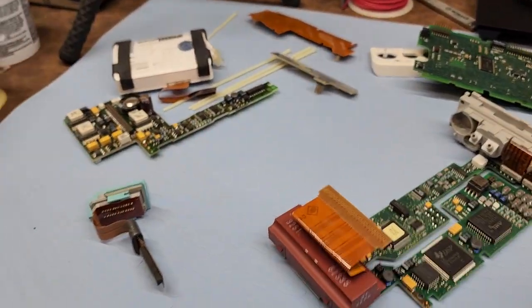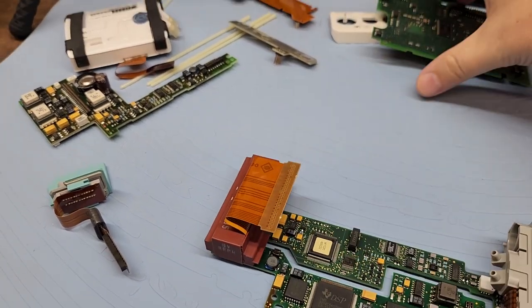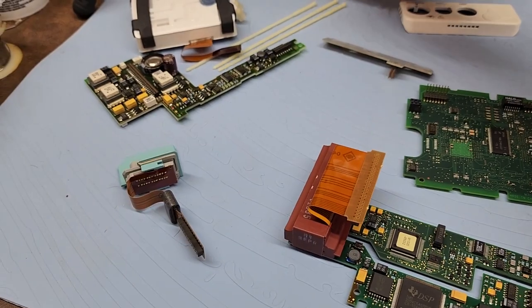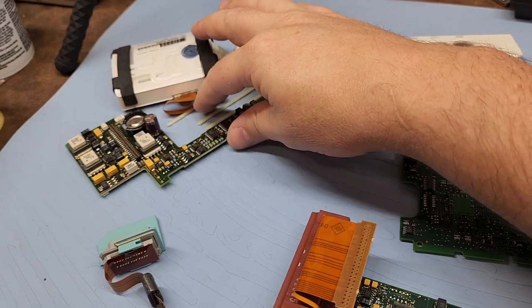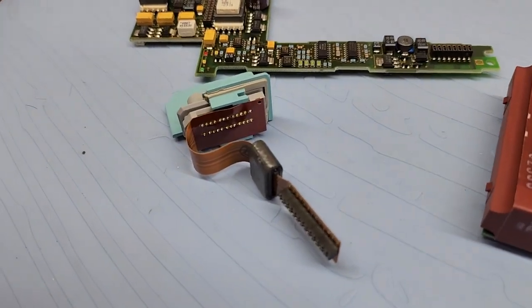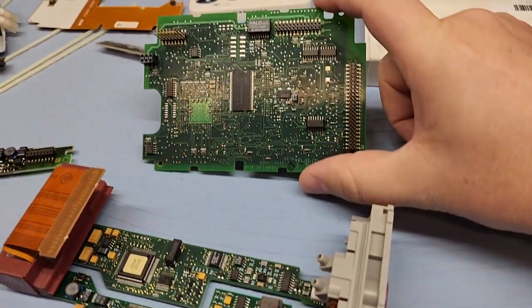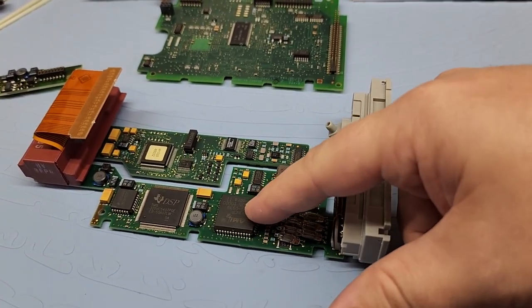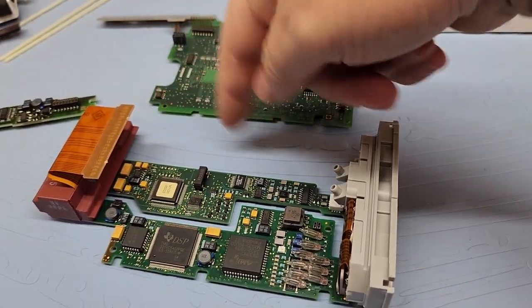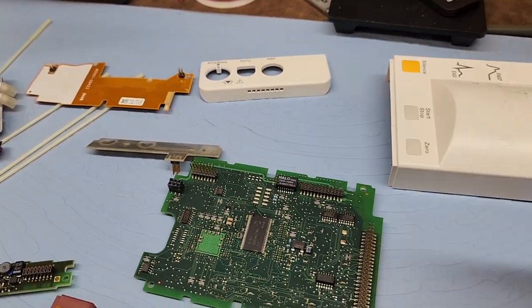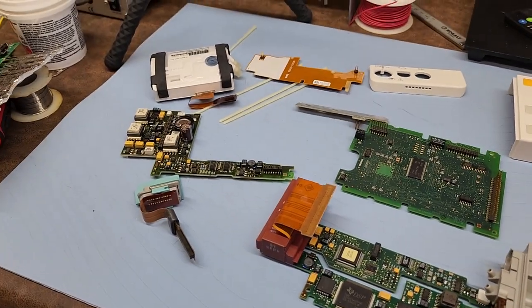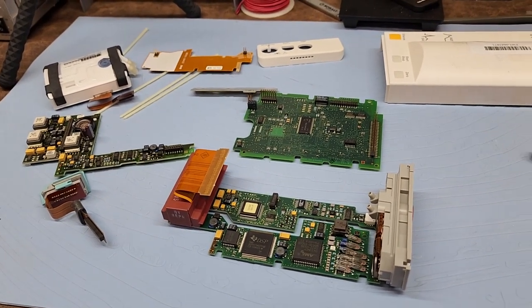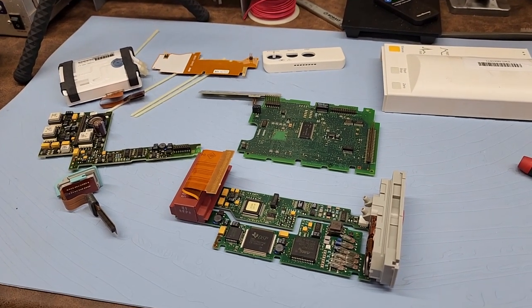So anyway guys, I know that was kind of a crude teardown and maybe crude explanation of what's going on in there. But nonetheless, it's absolutely fascinating. And I think that this guy has got probably some of the best engineering I have seen in a medical device in a long time. Everything is designed to be repairable, field replaceable. The boards are separated. I do like it. So if you have a problem with one different option, you can swap it out. Or you can upgrade it. Maybe. Very interesting. The parts are easily replaced. I really dig that. So that's quite a few components if you think about it inside that brick. But nonetheless, it is what it is. And I have seen these in the field for years. And they've been absolutely fantastic.